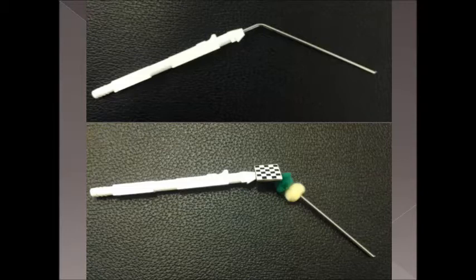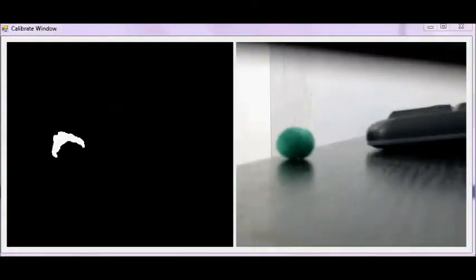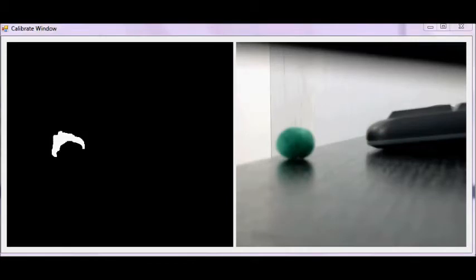The current approach uses the webcam to track a checkerboard and two small spheres on the tool. The accuracy and speed of the color tracking has significantly improved since the new approach is an implementation of contour tracking which does not require background subtraction.